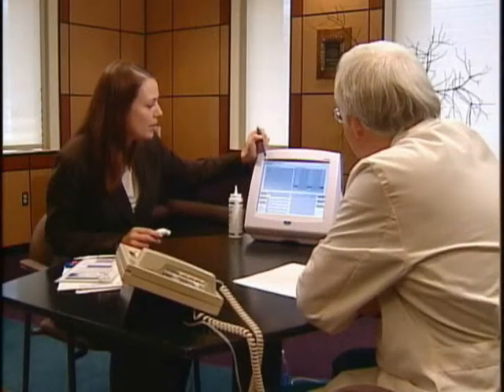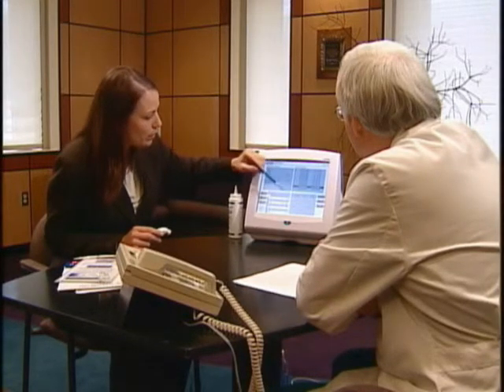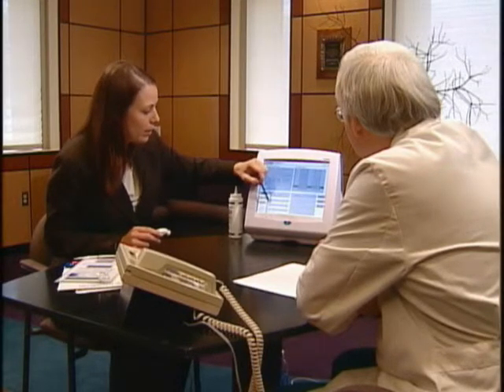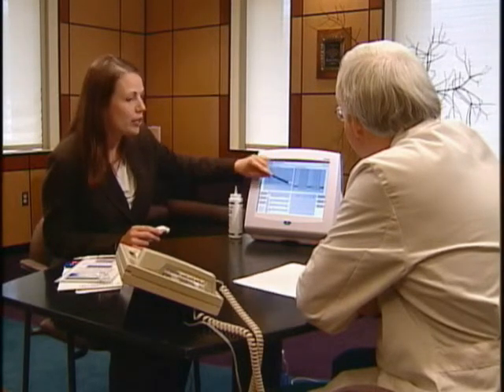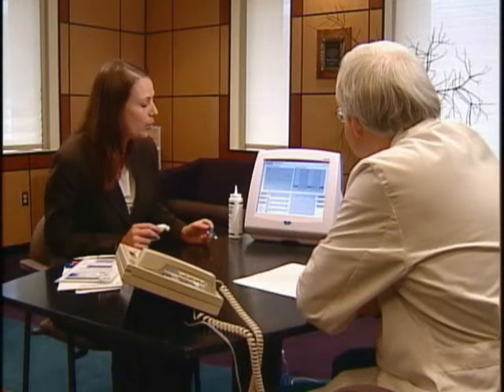You can also go into the patient tab here to look at more of a history on the patient. As you can see, I have a bunch of exams saved on myself. And whichever parameter you're particularly interested in, whether it's stroke volume, cardiac output, SVR, we'll put it on cardiac output for an example here. You can look at the change over time. So if this is a patient that you're giving a fluid bolus to or a change in drug therapy, you can look at your changes over time with the idea of improving their cardiac output to the optimal point and not overfilling them with fluid, for example.